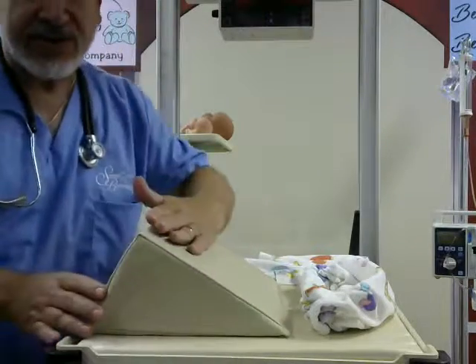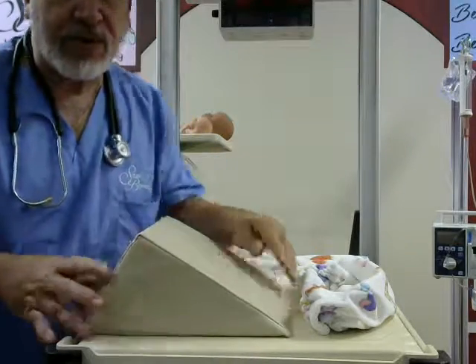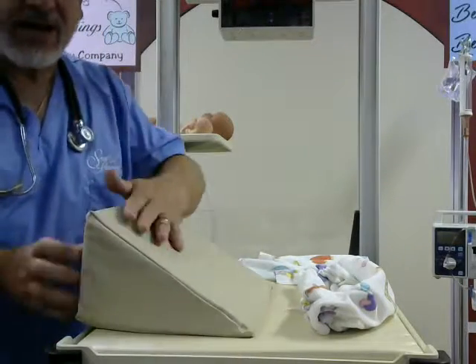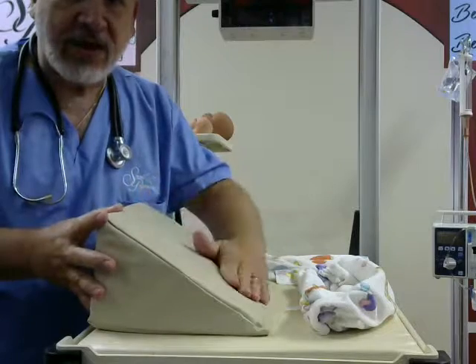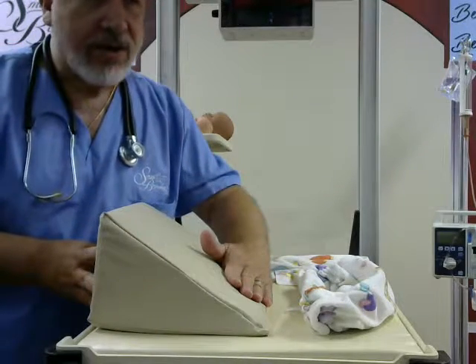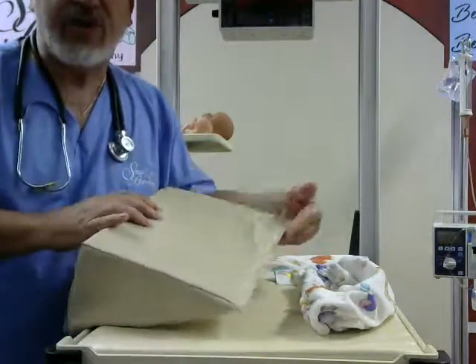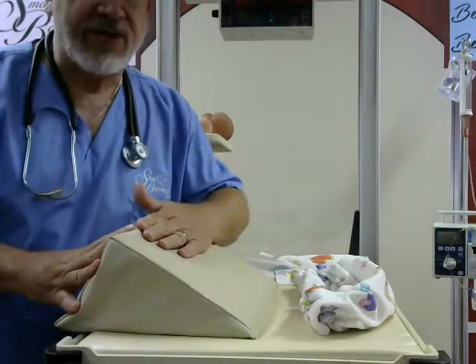It has two configurations. This is more of a smaller slope. If the baby's really bad and larger, you're going to want the upper one. The higher wedge configuration is for your normal preemie, and for your micro-preemies you'll probably want to use the lower configuration.